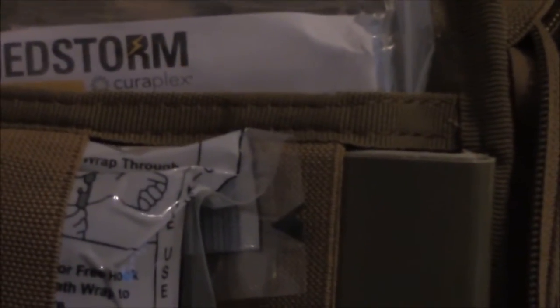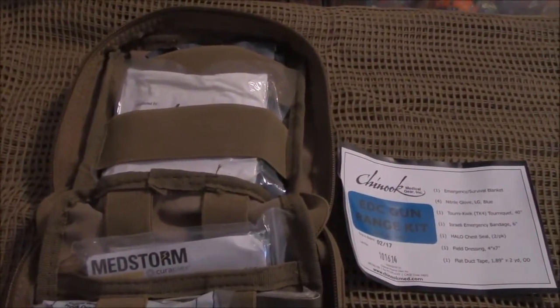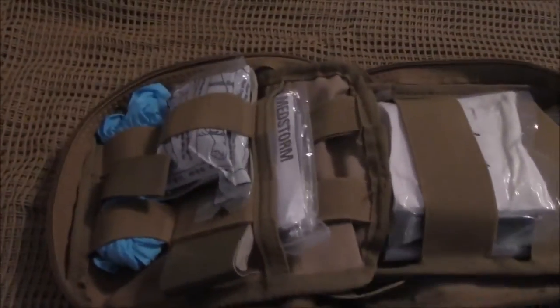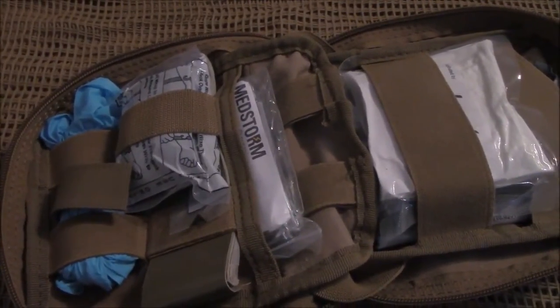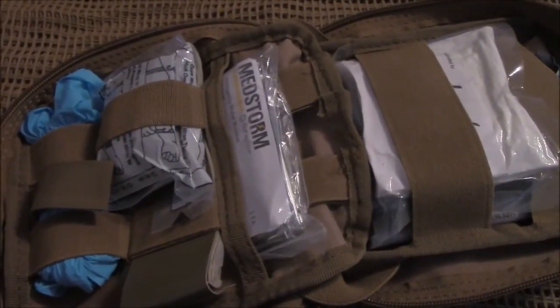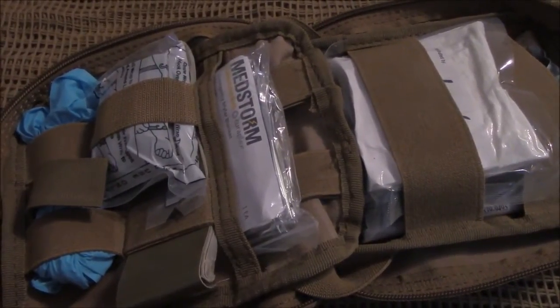As you look at the kit, everything lays in nice and neat inside that pouch. You've got your gloves right here, your TK4 tourniquet right here, and right behind that is the duct tape. Duct tape is extremely useful for traumatic injuries because all these plastic bags and plastic packaging — don't throw these away — you can actually use the plastic packaging as a chest seal for a second chest wound. So if you have either multiple wounds or multiple victims, you've got to be able to think outside the box.